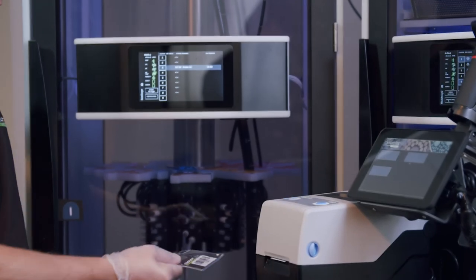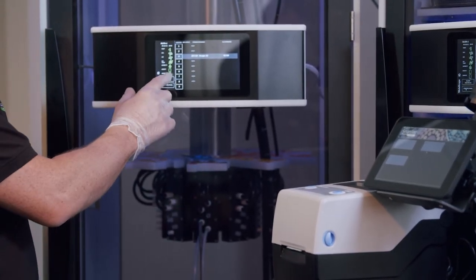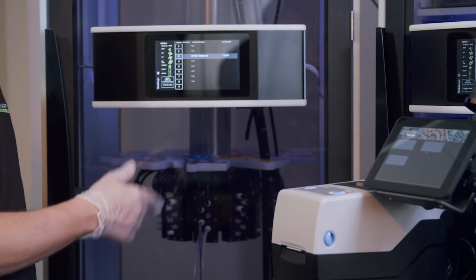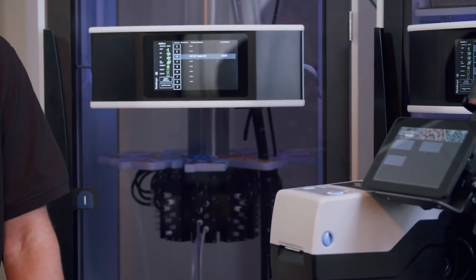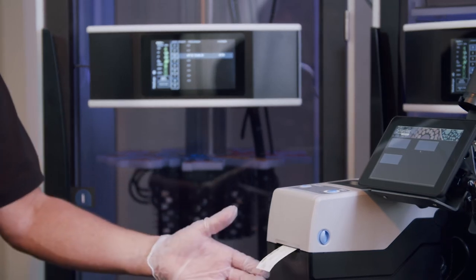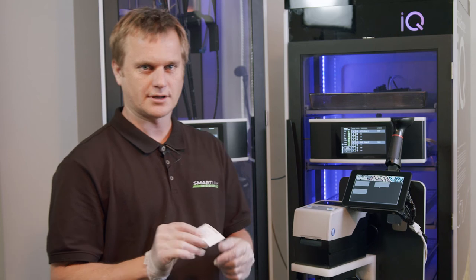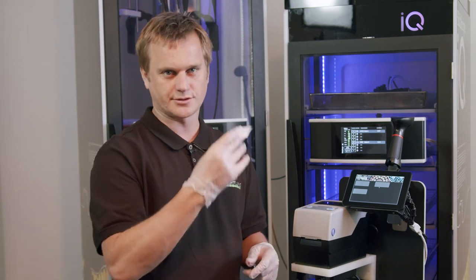To do this, after cleaning the cabinet, you get your staff code, you swipe it, enter the operator, and you click the clean date. Cleaned. And it validates and recalculates that clean time for the next clean. It also prints out a little label that can go into a logbook about cleaning, and it's also stored on the main database.